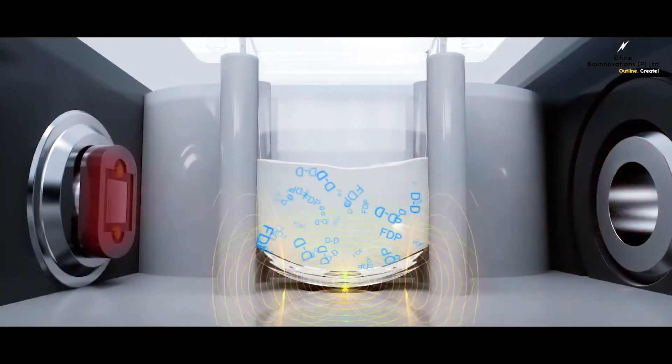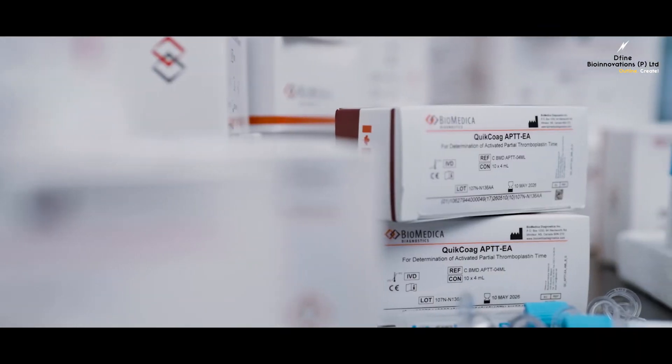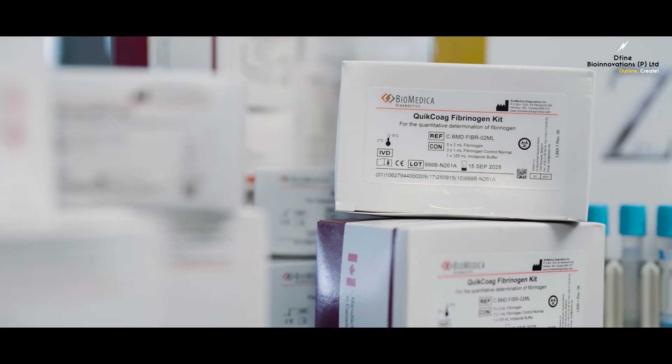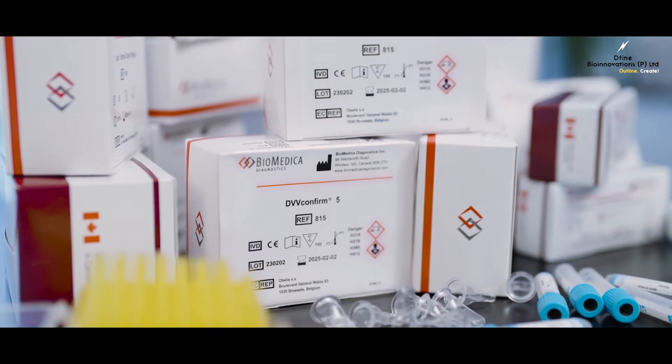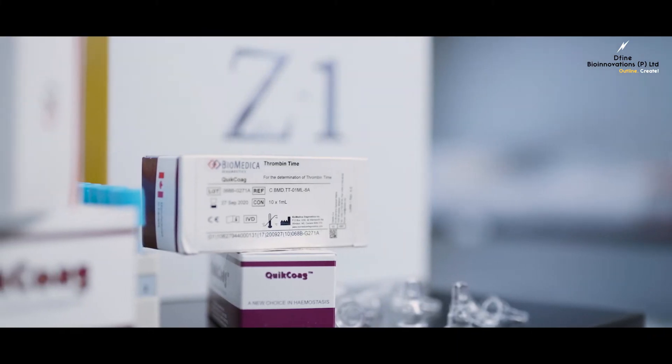The built-in mechanical testing additionally enables independent clotting tests covering prothrombin time, activated partial thromboplastin time, fibrinogen, lupus anticoagulants, factor assay testing, thrombin time, and more.